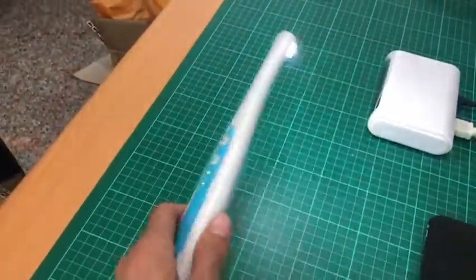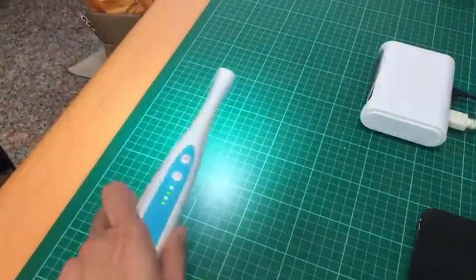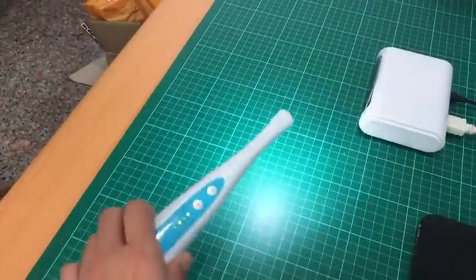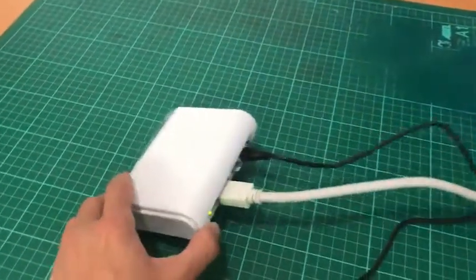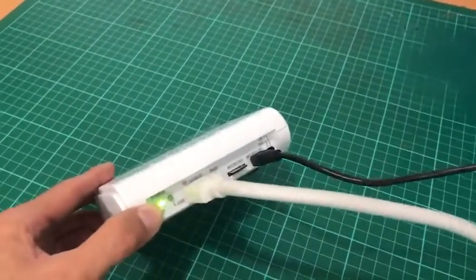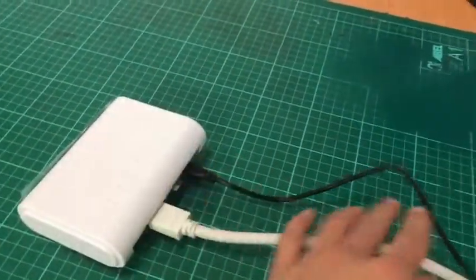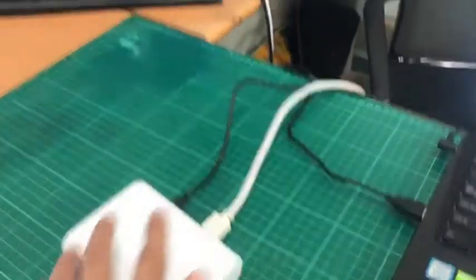For the dentist, use this camera. It's cable-free, no cable limit. You can see the receiver side — you can find the HDMI output and USB output. The USB can connect with the PC, which provides power, and the HDMI output goes to the bigger screen.